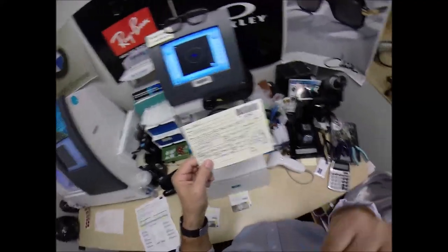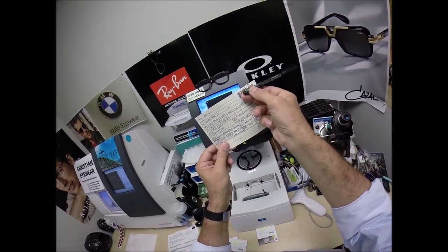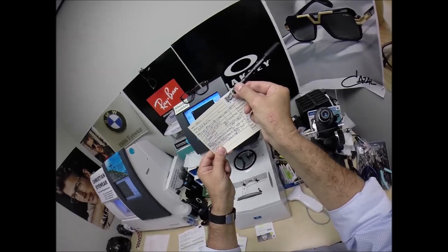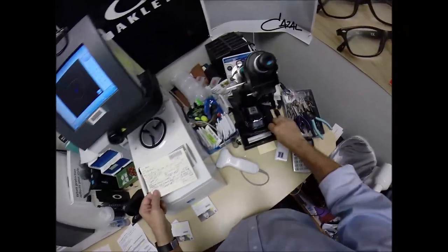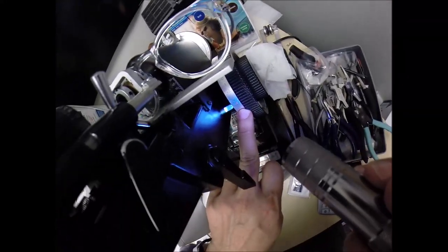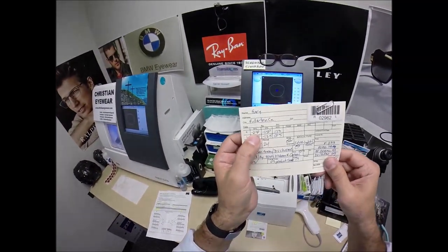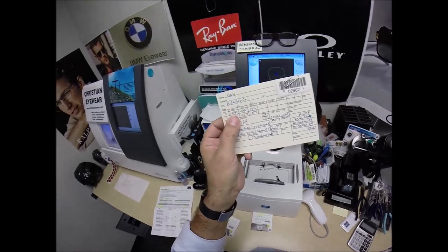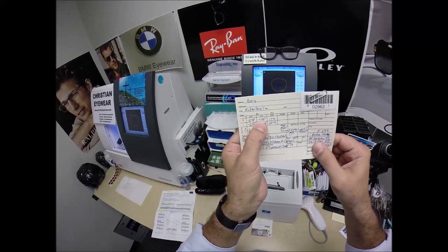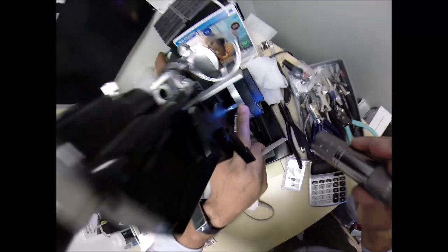Let's check the second curvature of the lens, and if all goes well, we'll get to four. Four, exactly halfway between three and five. Remember high school math? Someone borrowed $2.50 from you, then they borrowed another $1.50 — they would owe you $4. That's where I have $4 in the red. Now your left eye: same amount of myopic correction, but one less step of astigmatism correction, and we're going to turn that fine tune knob to five. The reason why this is called the add — it means in addition to what's on top. You add these two numbers together, you would actually get a minus 50 as reading glasses.